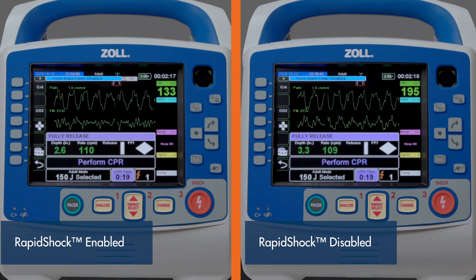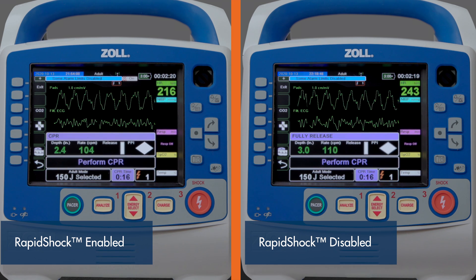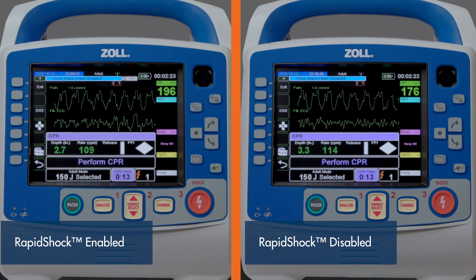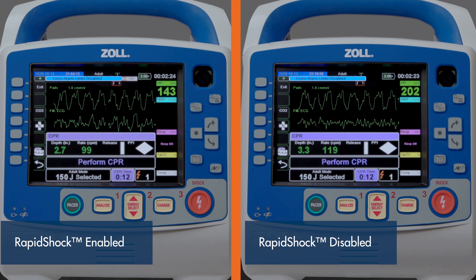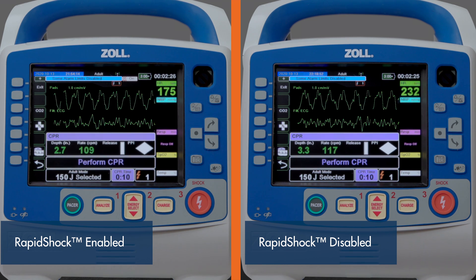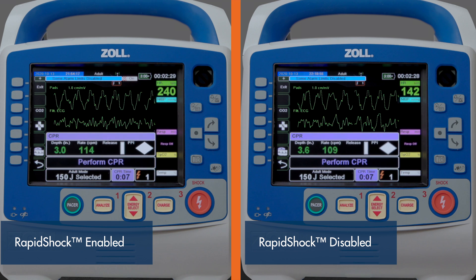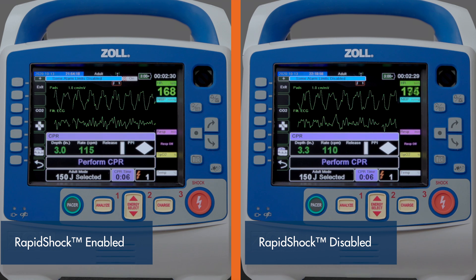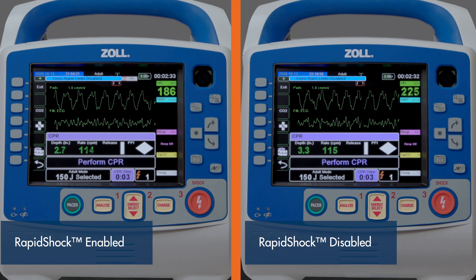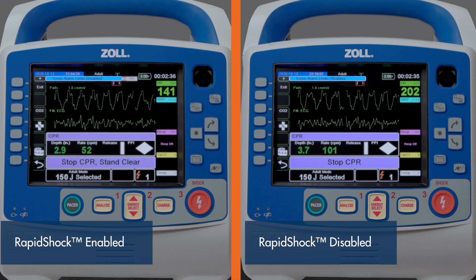Rapid shock has been enabled on the X-Series Advance to the left, while the feature has been disabled on the X-Series Advance to the right. As you can see, with rapid shock enabled, the analysis algorithm can offer a shock-advised decision significantly faster than the device with the rapid shock option disabled.